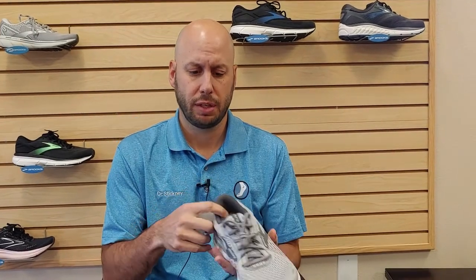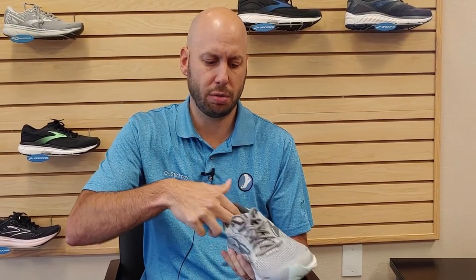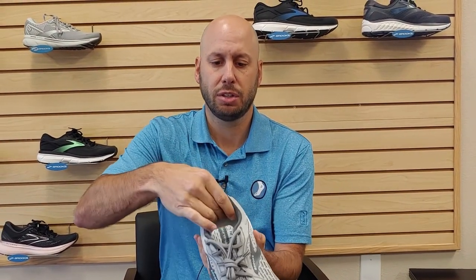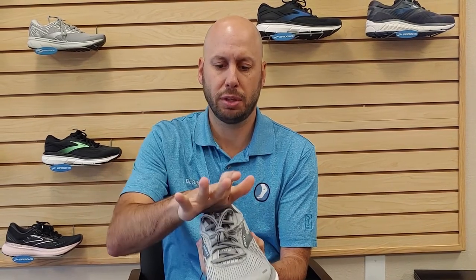How you use a heel cup is very simple. It will slide in your shoe — you take your shoe just like this, and the heel cup will then just slide in with the long part going longwards, and you'll just tuck it back in at the heel. It'll cinch in right back there. When you put your heel down, that will pad the heel and keep the heel cup right in that good position.